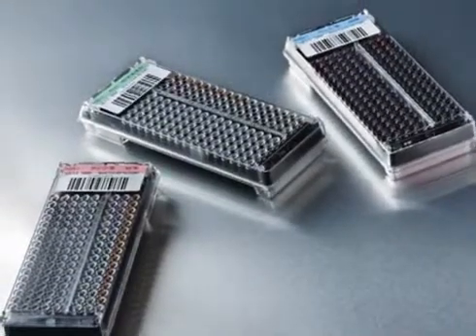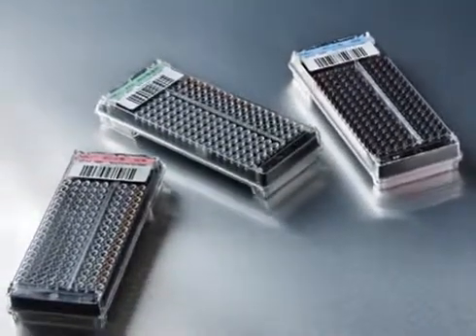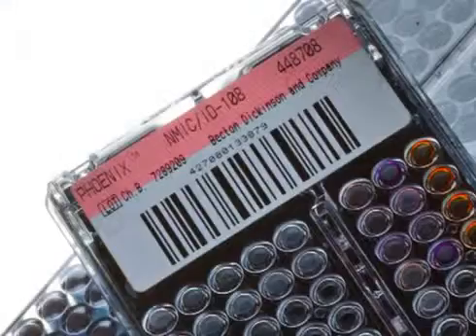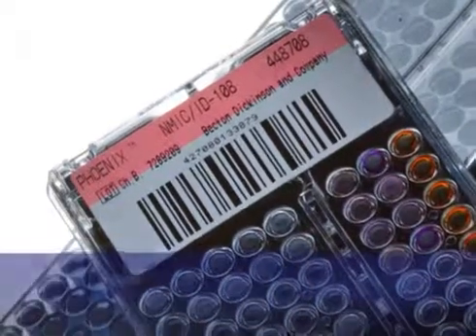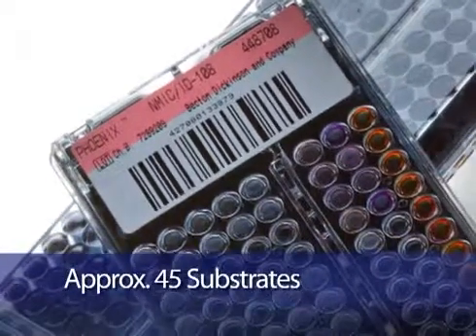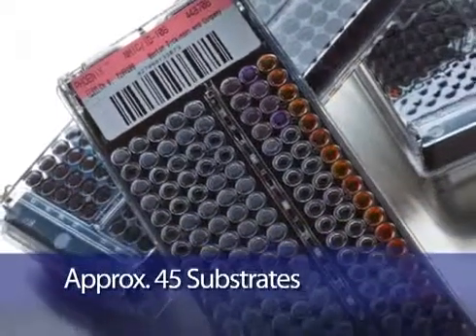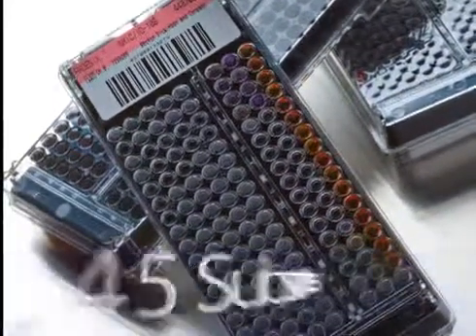The bar-coded panels tell the instrument exactly how to test the isolate and are designed to report identification and susceptibility results. Organism identification is made using approximately 45 chromogenic and fluorogenic substrates. These require no reagent additions or offline tests for consistent bacterial identification.